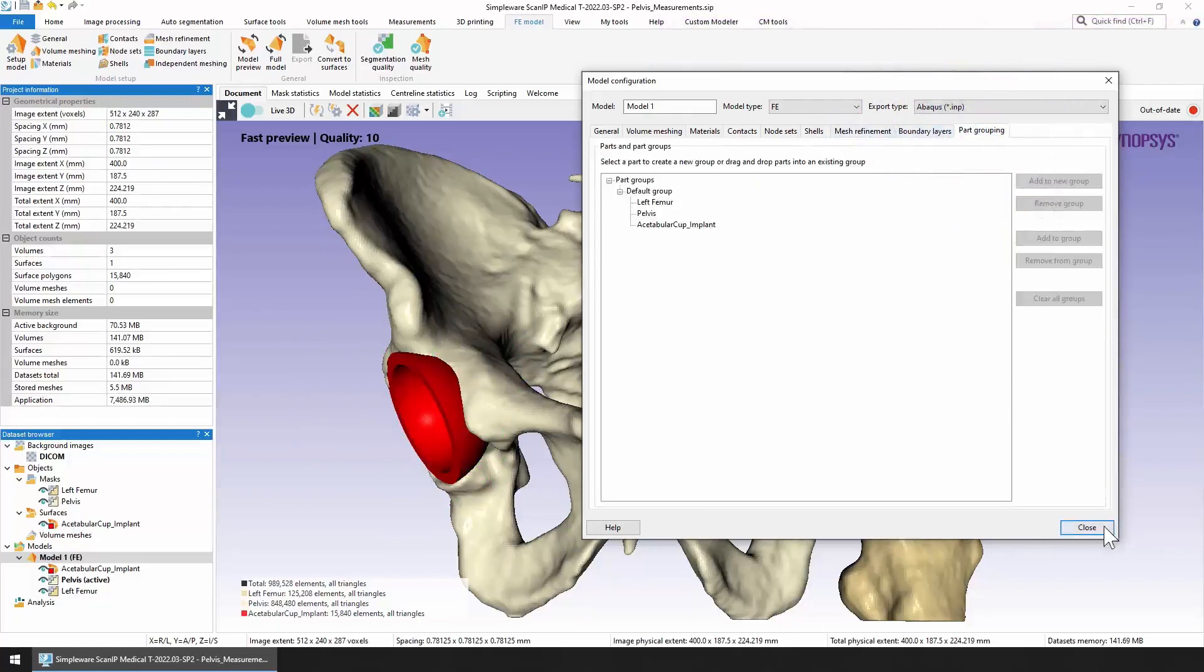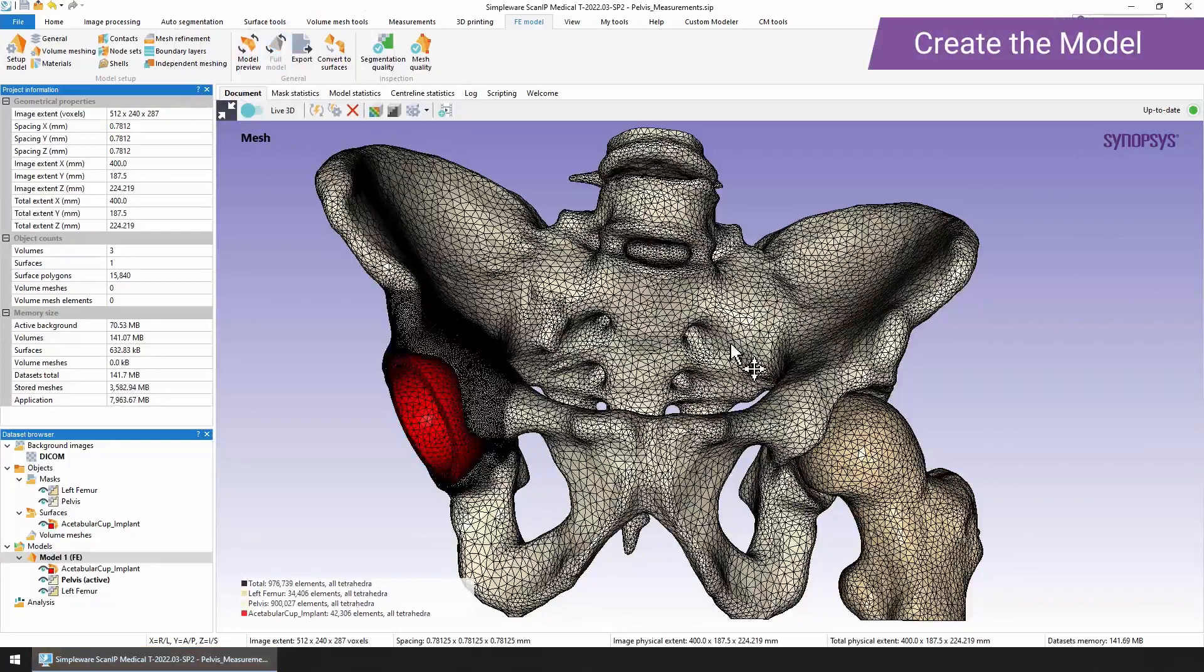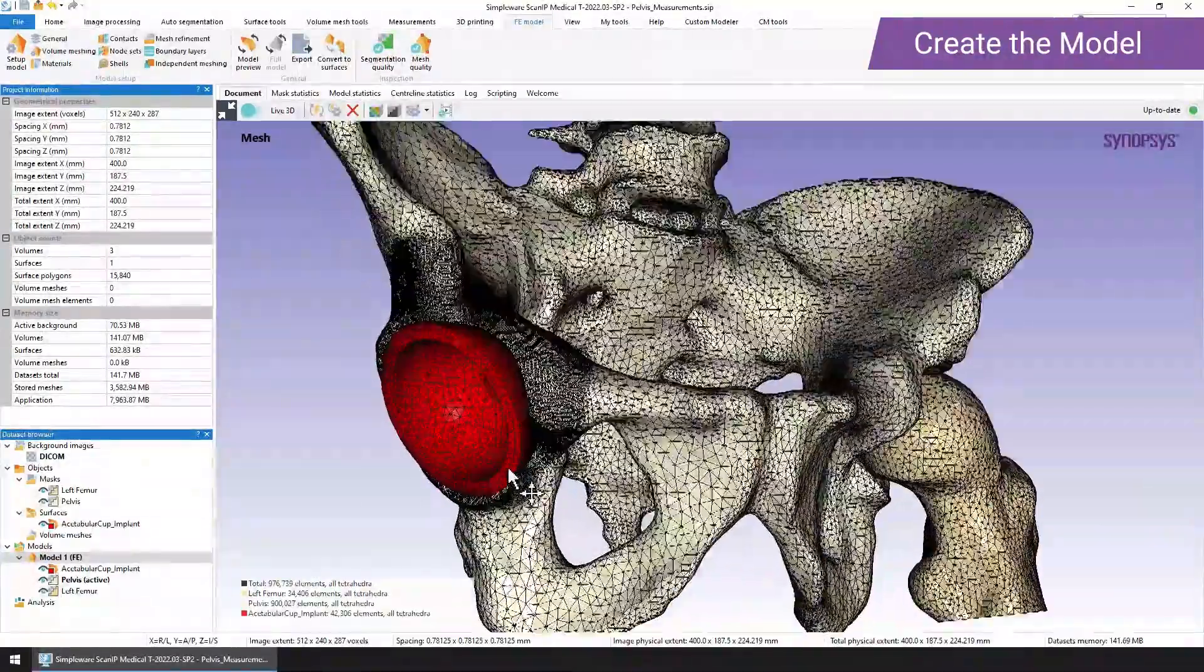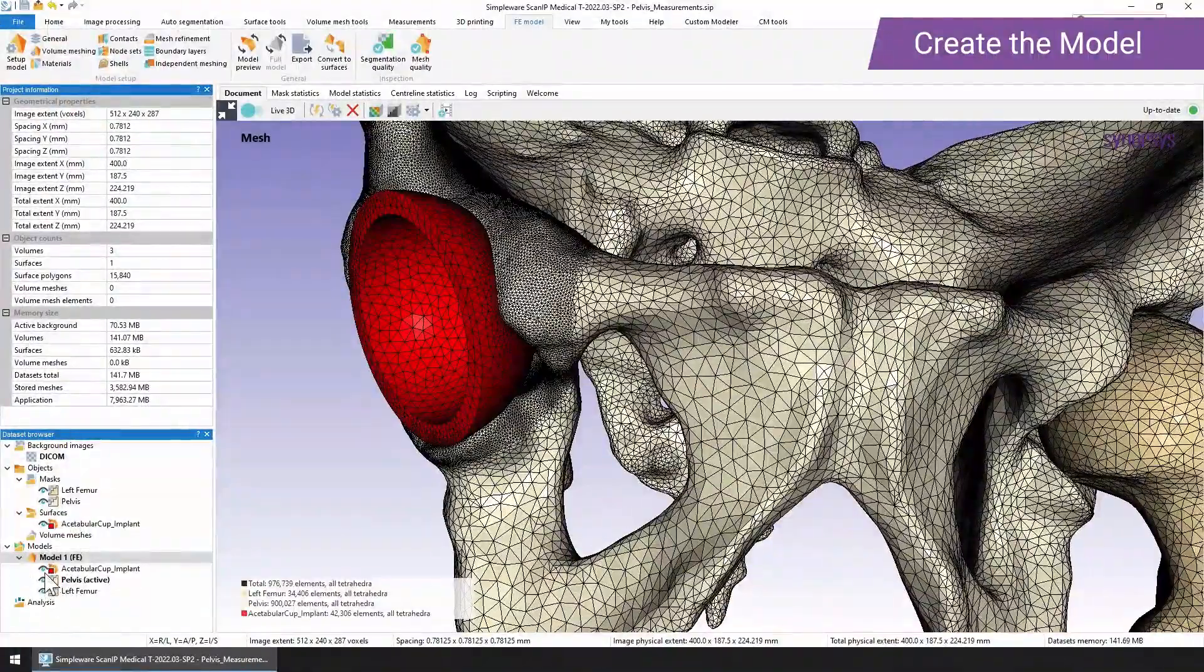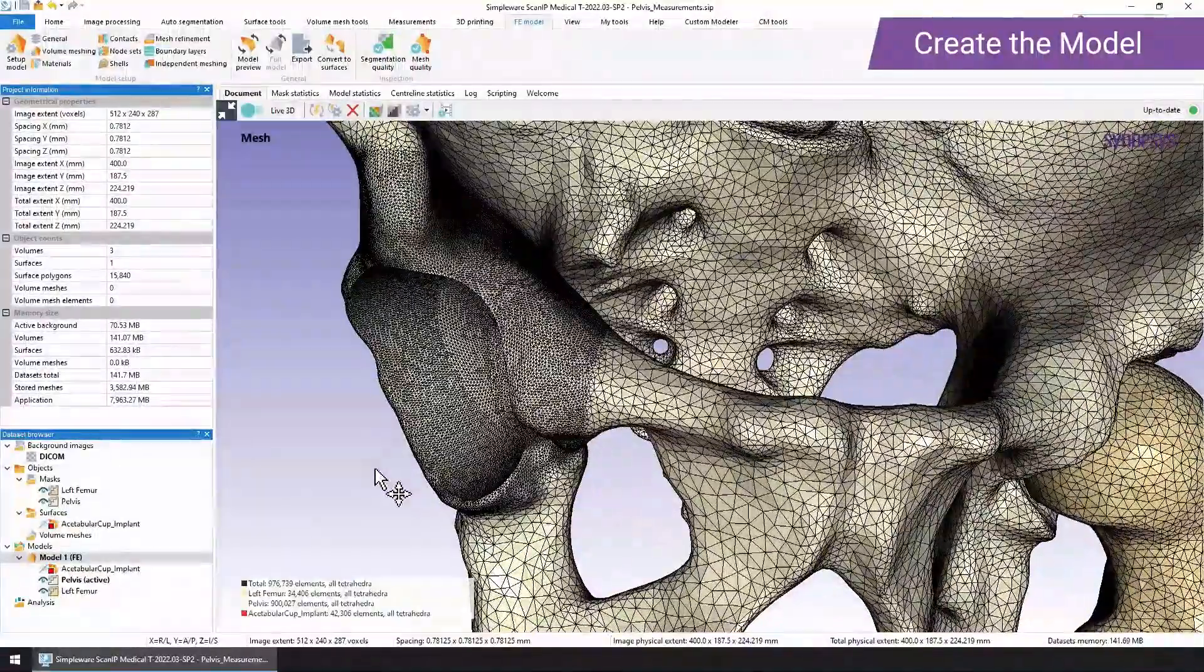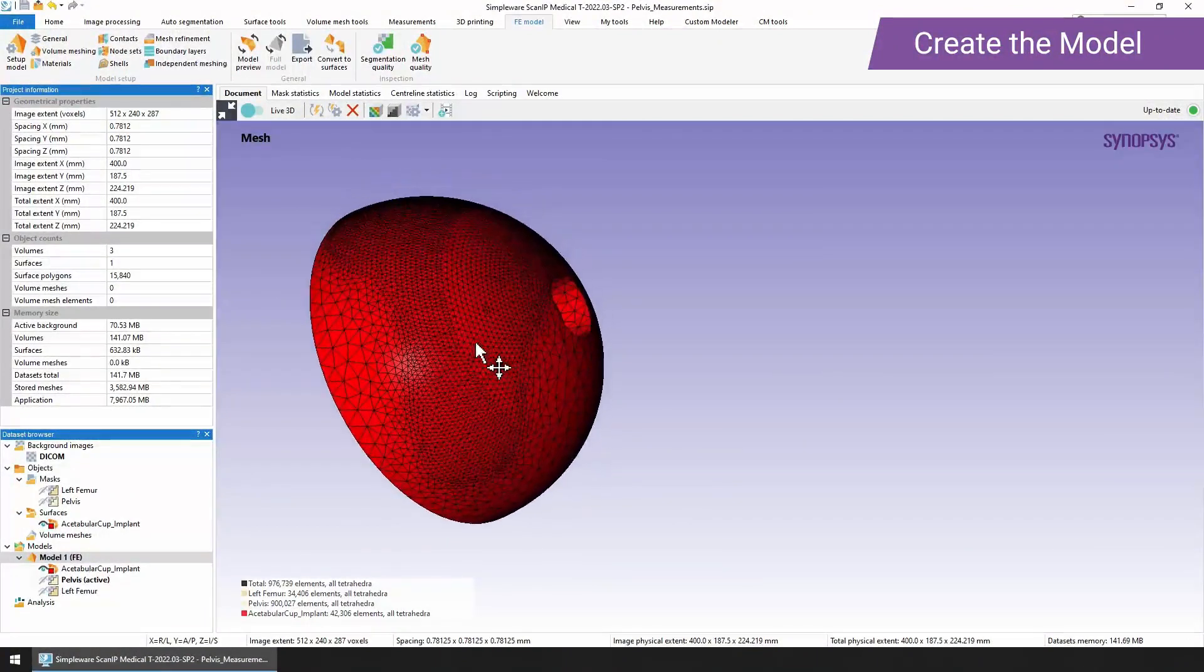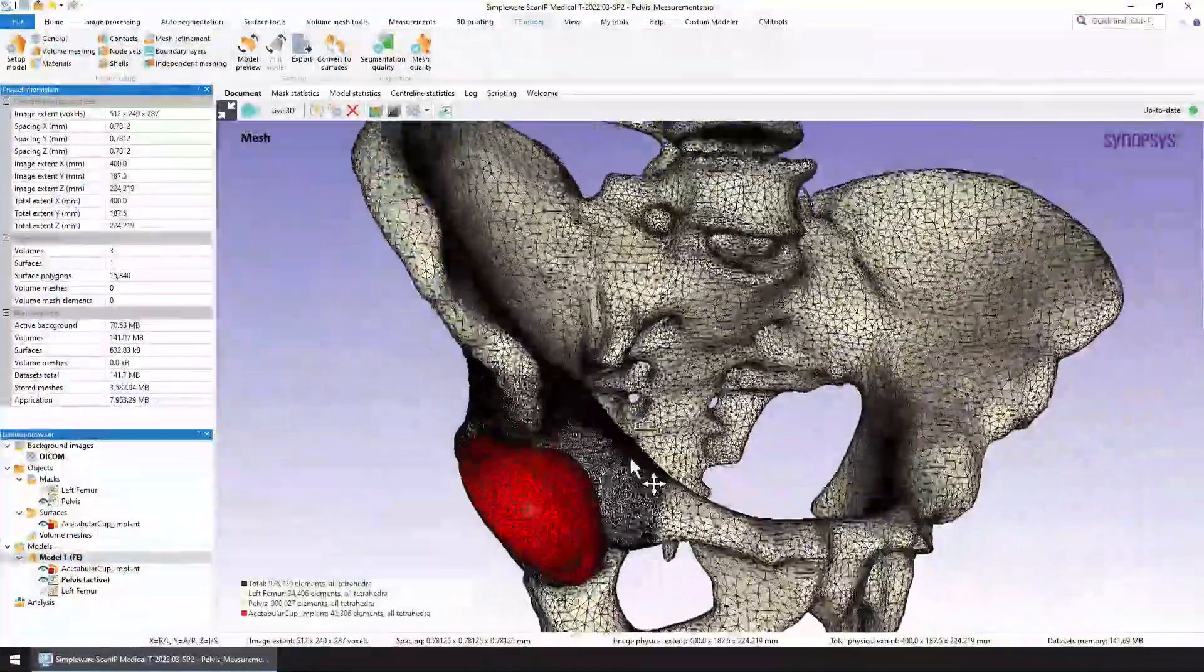Here we can see the mesh generated for the FE model. Now you can see we've got quite a coarse mesh for the pelvis and for the left femur. The area where we asked for quite a fine mesh refinement, you can see there. If we just make the acetabular cup invisible, you can see that in a bit more detail. Now at the point where these two intersect, you'll also find that the acetabular cup also has a very fine mesh. That's because we have matching nodes at the interface between the two.